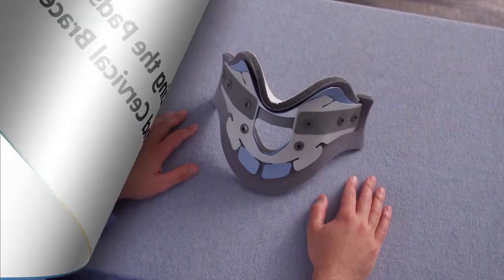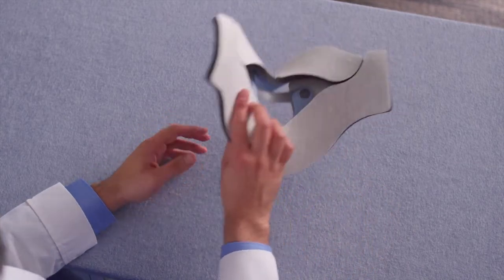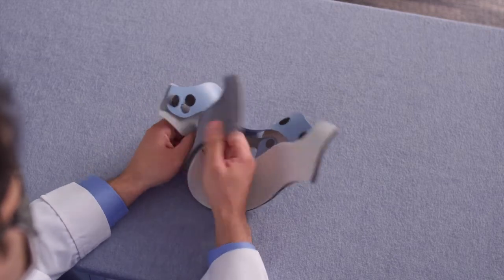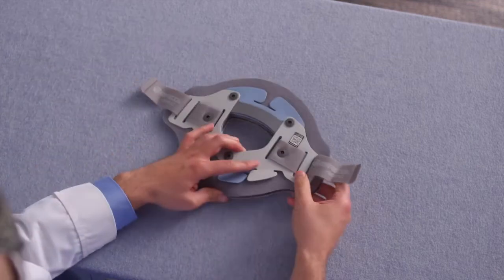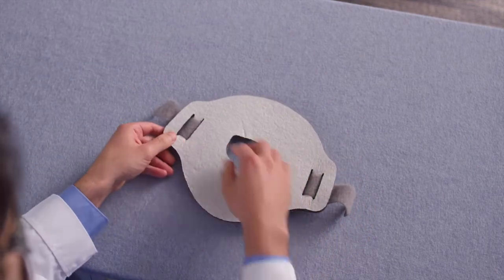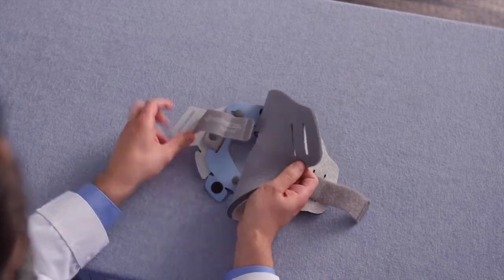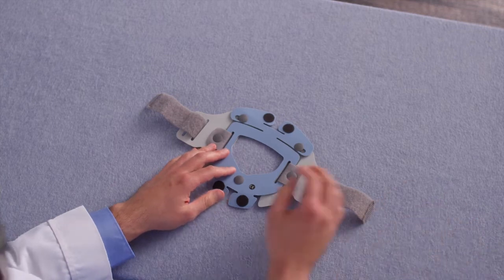To remove and replace the pads on the Ascend 172 cervical collar, start by removing the chin and chest pad by detaching the loop material from the hook dots that are spread around the collar assembly. To remove the pad from the posterior panel, start by pulling the strap from the outer slot on both sides of the posterior plate assembly. You can then remove the pad by detaching the loop material from the hook dots on the posterior plate.